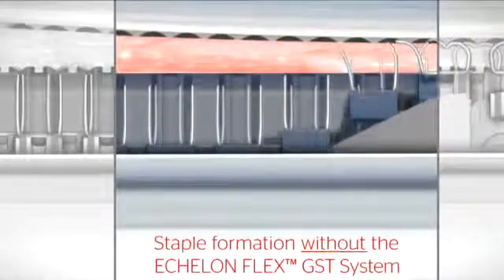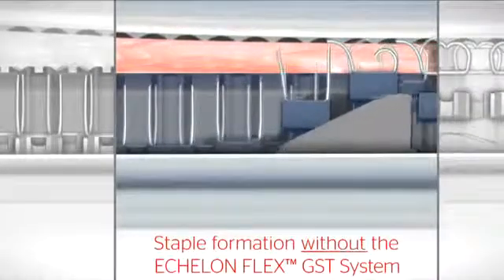Tissue slippage during firing can push staples off course, causing one or both legs to miss the anvil pockets, leading to malformed staples.